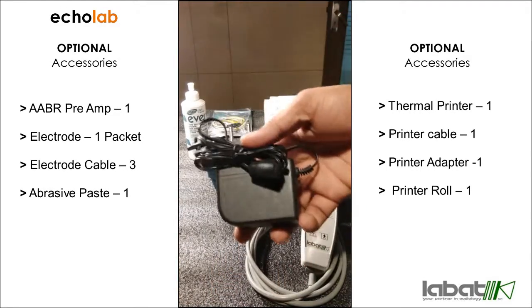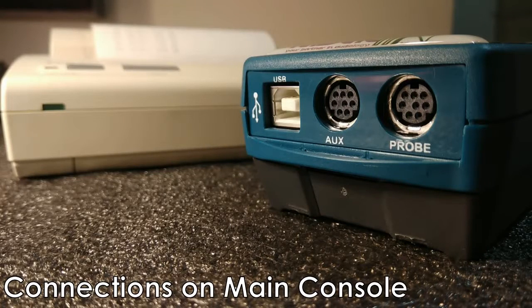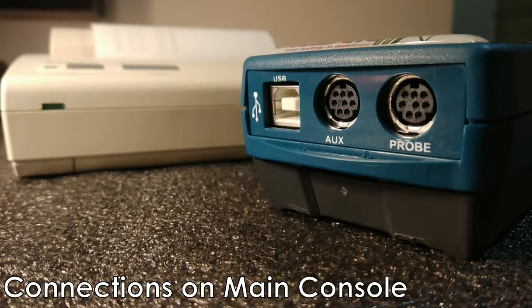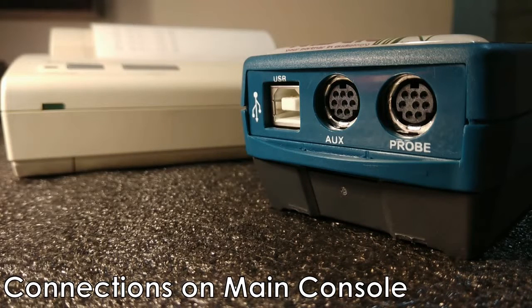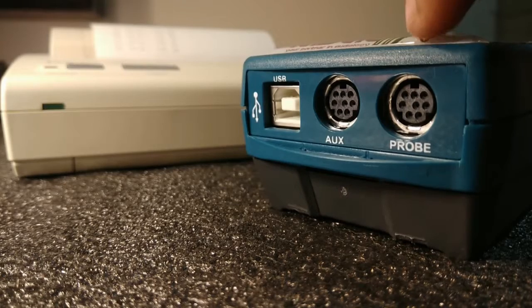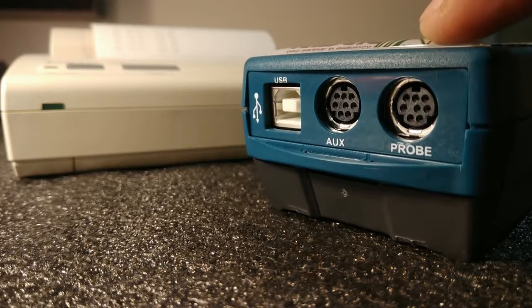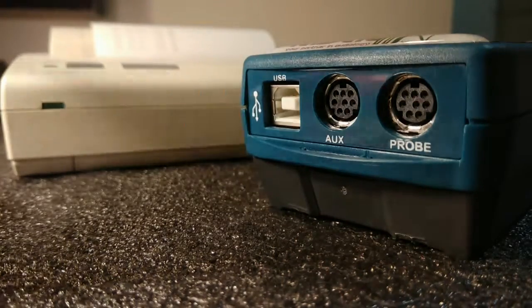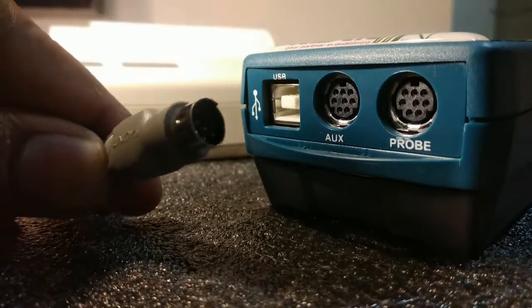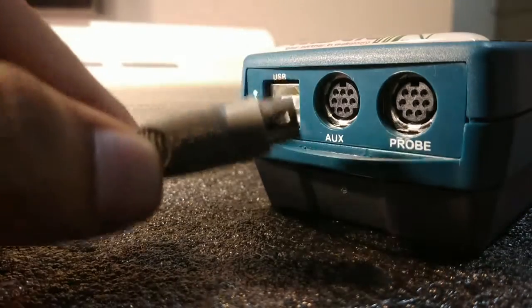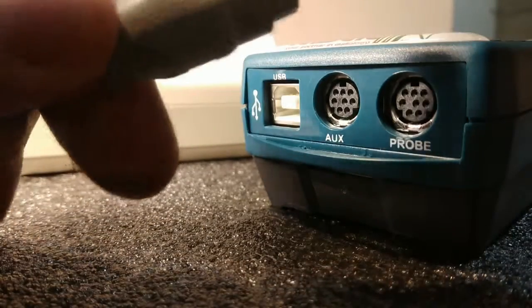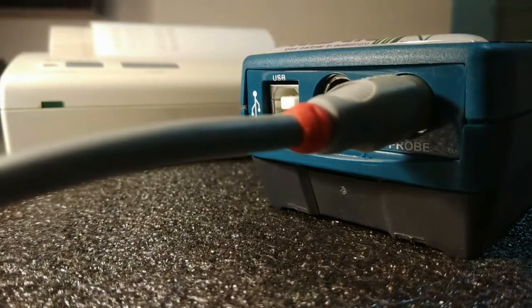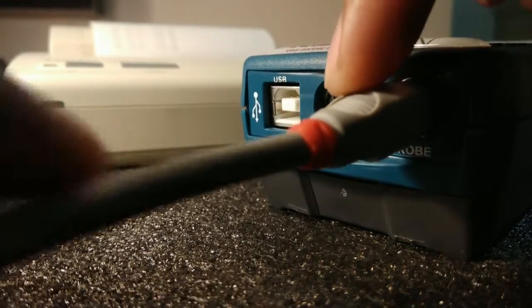Let's make the connection of the Ecolab. Let's first make the connection of the probe. This is the place where the probe will be connected. This end of the probe will go here, so keep this side up. It goes like this - as you can see, it's connected.